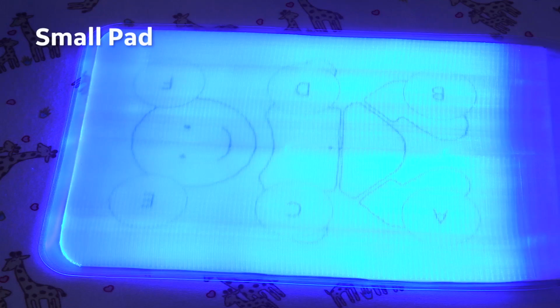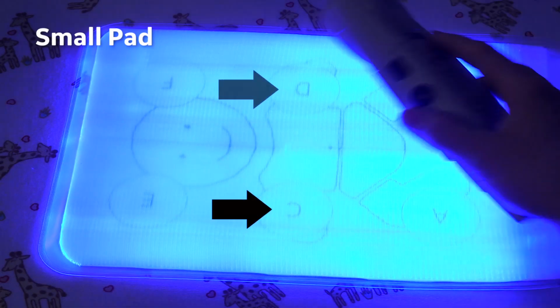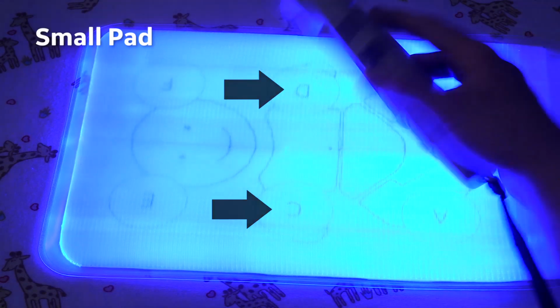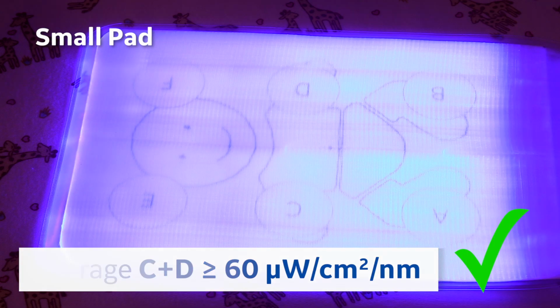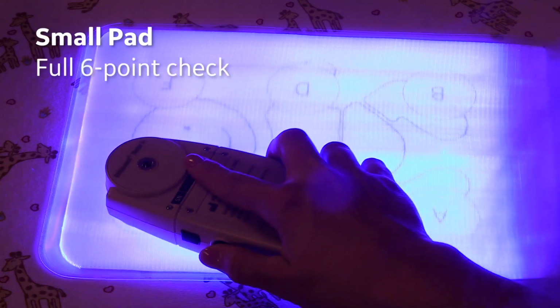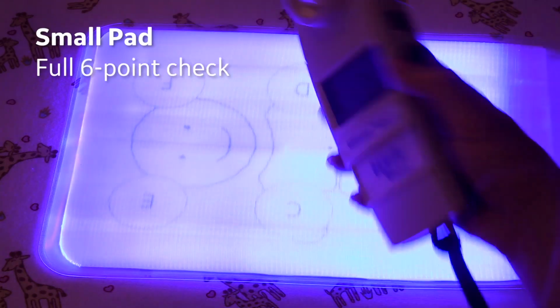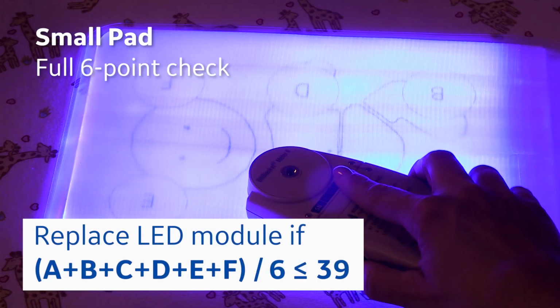So, for the small BiliSoft 2.0 pad, if I take the readings in the middle, C and D, and take the average of C and D, if it is greater than or equal to 60 microwatts per centimeter squared per nanometer, then it works. If you get less than 60, you'll want to do a full check. You check all 6 points and you take the average. If it is less than or equal to 39, then it's time to replace the LED in the box.